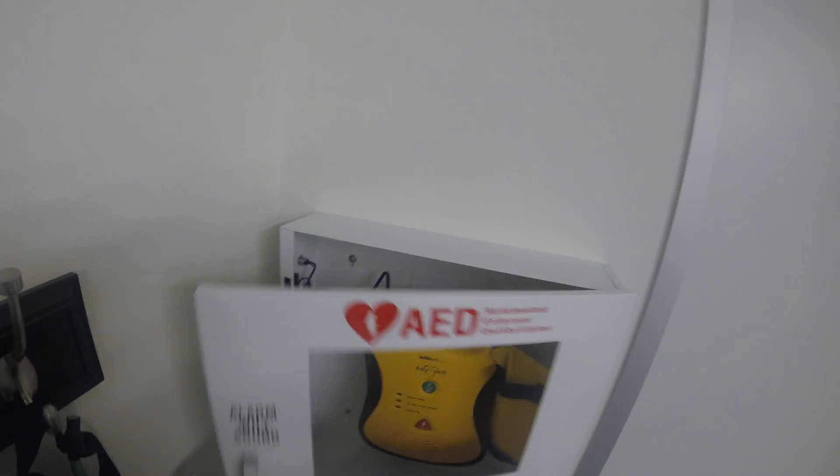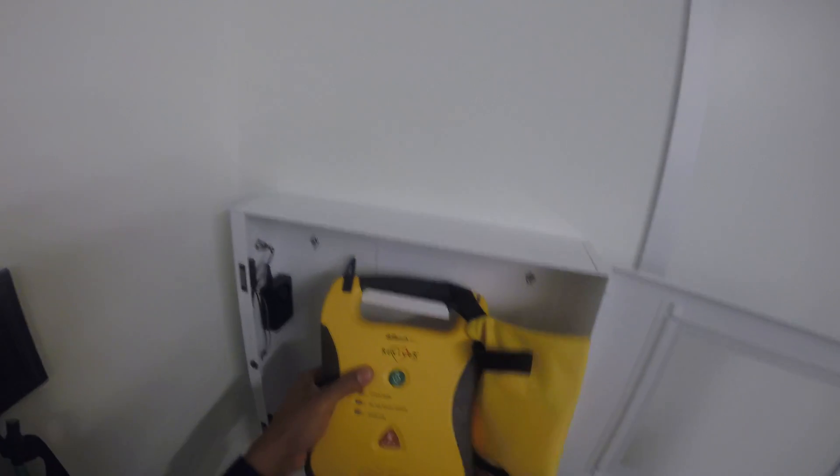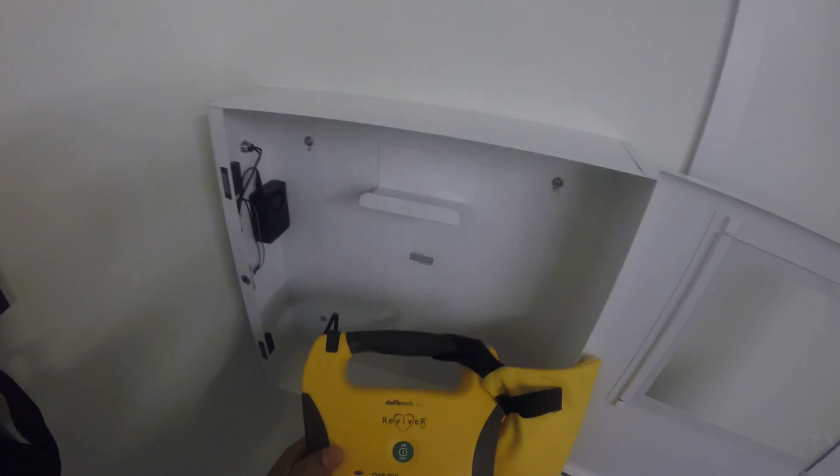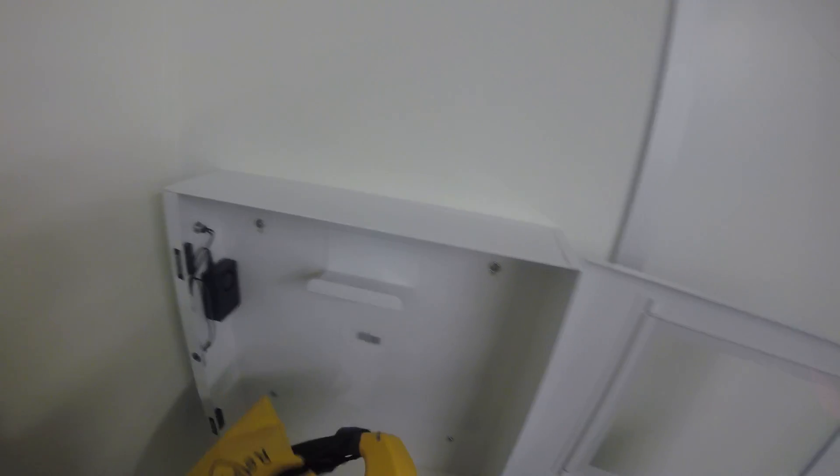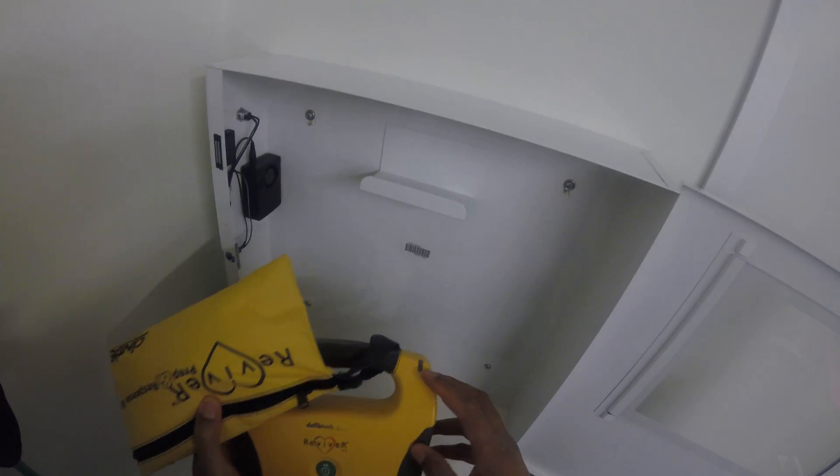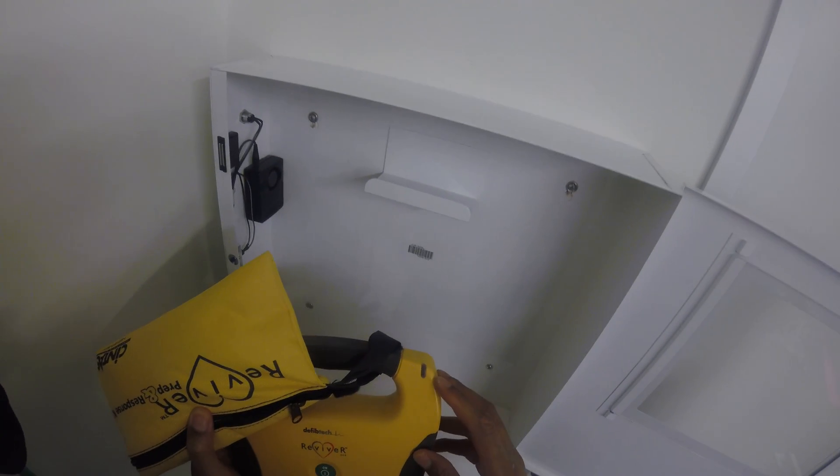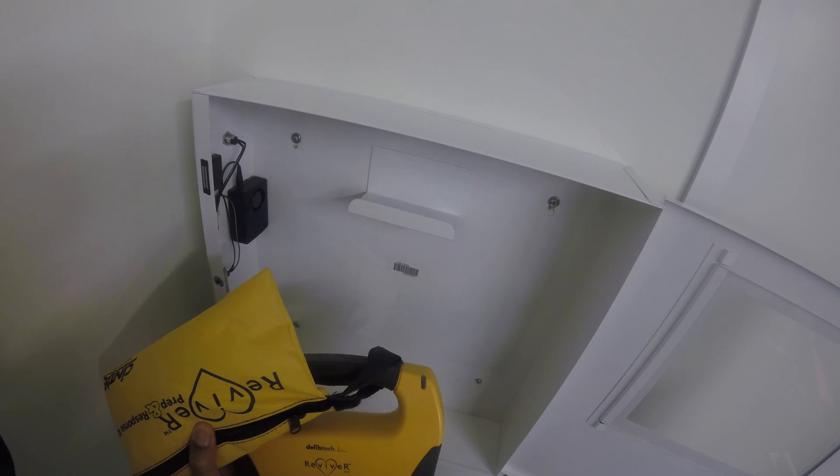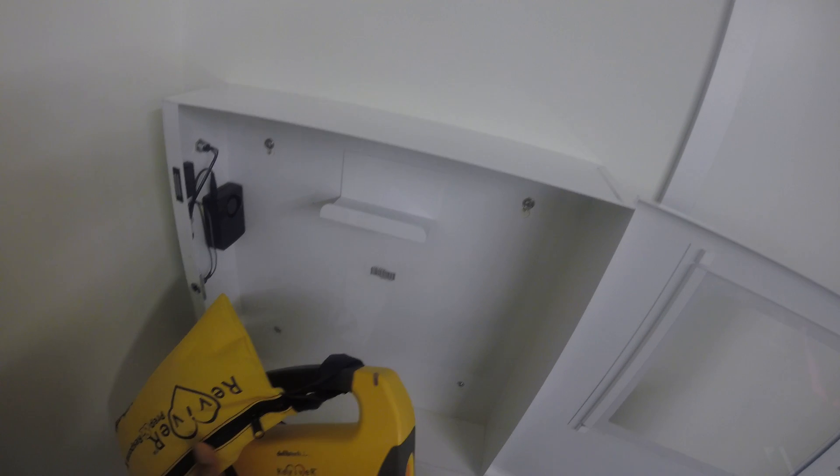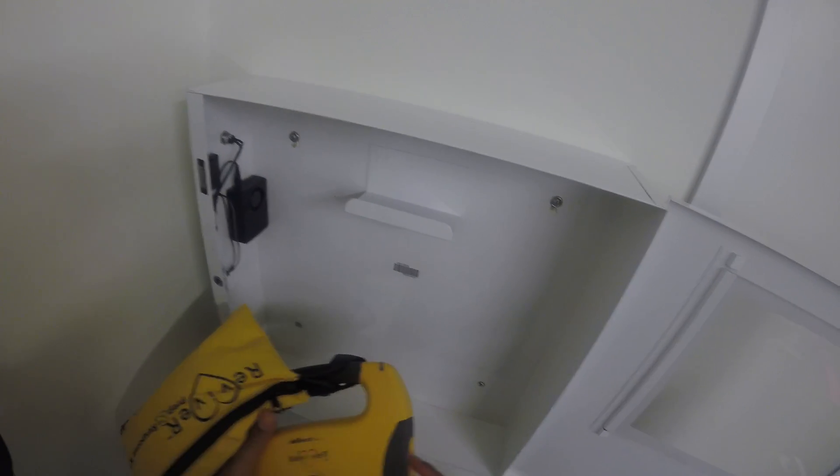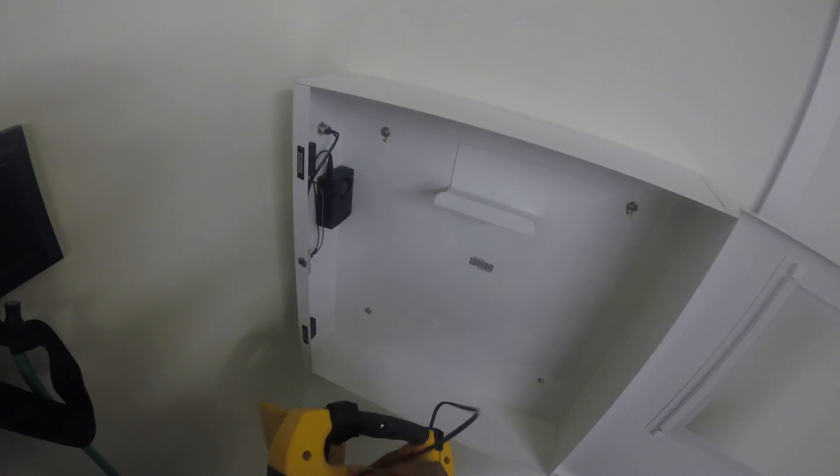Alright, I'm going to check this first. I'll do it like this and see if the indicator light is on. Wait for it to blink. It's not blinking, so there's clearly an issue. Before I get to that, I'm going to check the expiration dates.